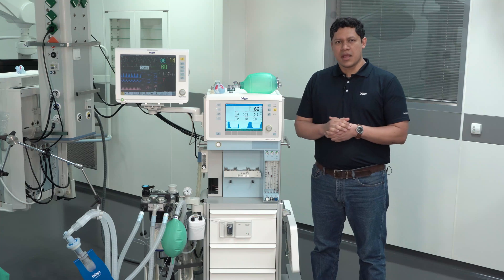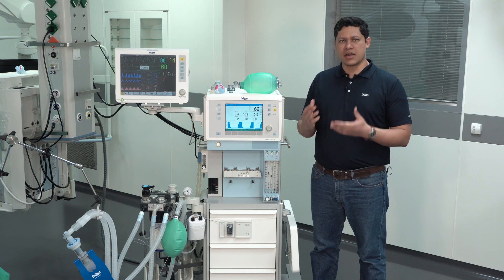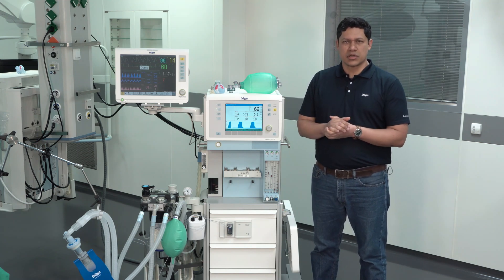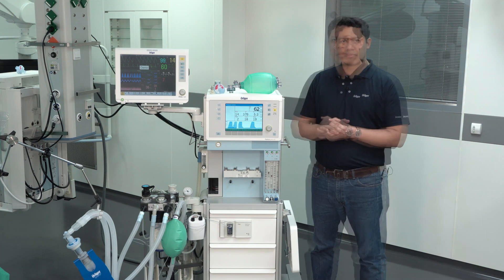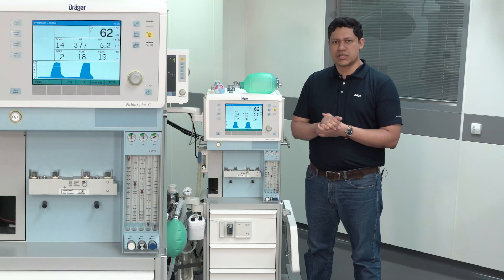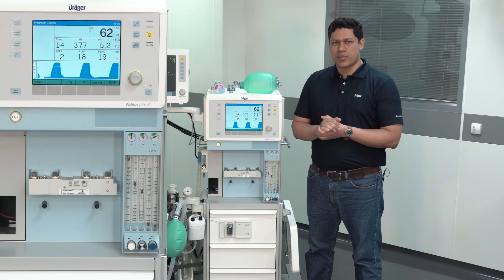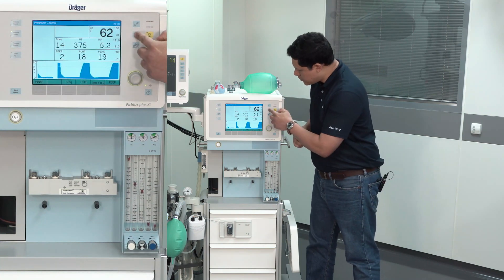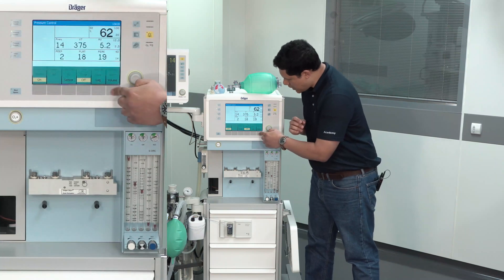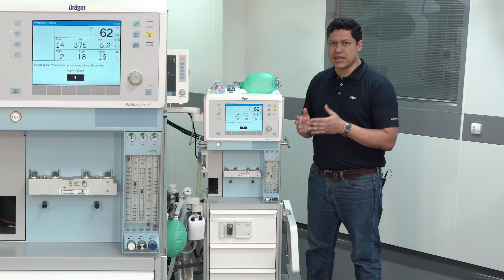If possible, stay always in the vicinity of the anesthesia device. Remember, the design of the alarm management has been done for the operating theater, where the user is always close to it. When using the anesthesia device for long-term ventilation, our recommendation is to set the alarm volume to the maximum level. To do so, press the menu button, then access the alarm volume and take it to the maximum level using the rotary knob, then confirm it.